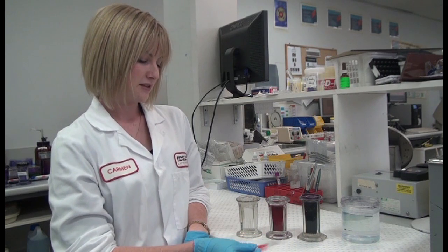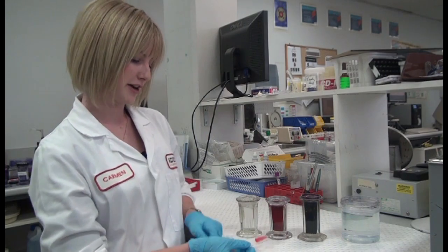The next stage is to stain your smear. After you let it dry — let it dry by air drying or in front of a fan — but nothing with heat like a hair dryer.